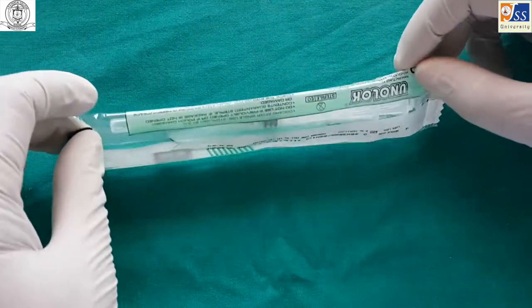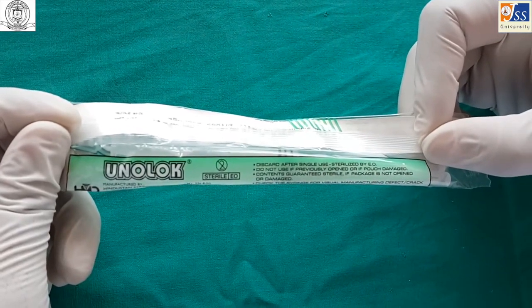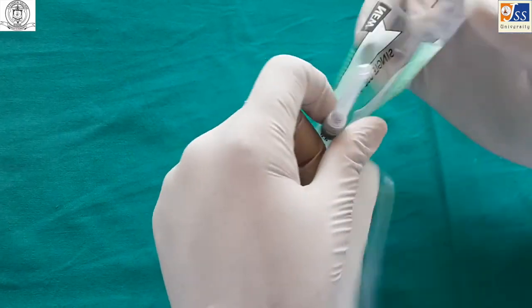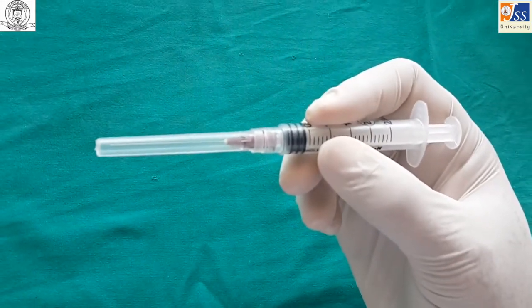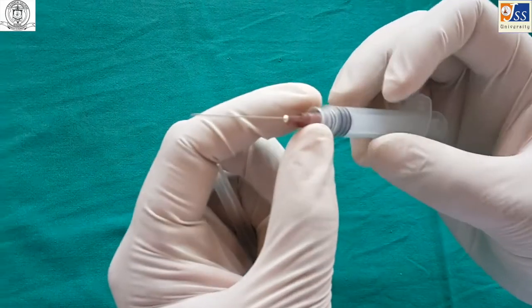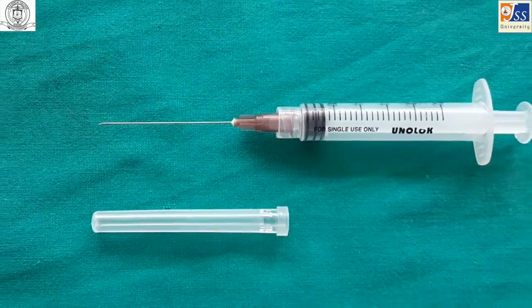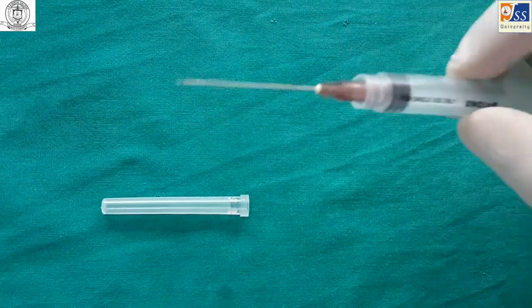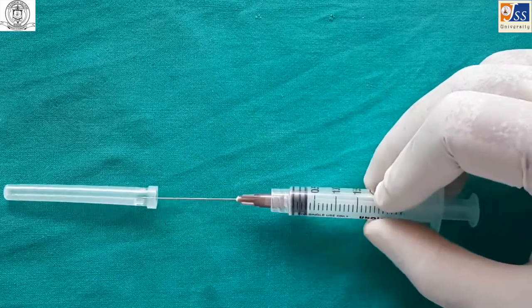We normally use a plastic disposable type of syringe, which is sterilized and packed using ethylene oxide. The syringe is held in a pen grasp or a modified pen grasp. The parts of the syringe are: cap, needle hub, barrel, and piston. The needle has a bevel at the tip. When administering local anesthesia, the bevel of the needle should be facing the bone. One must use the scoop technique for capping the needle as shown.